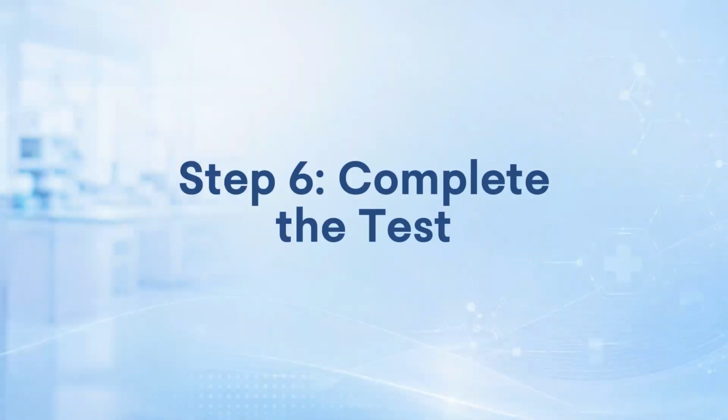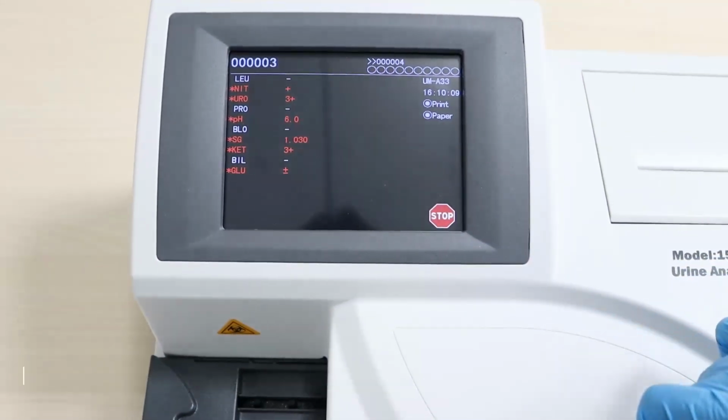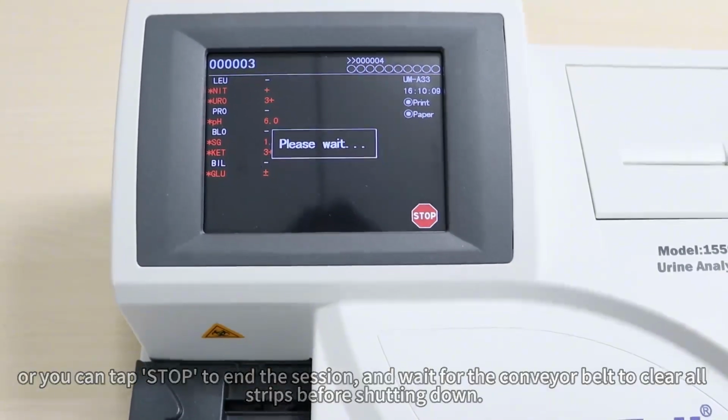Step 6. Complete the test. Make sure there are no remaining strips on the tray, or you can tap Stop to end the session, and wait for the conveyor belt to clear all strips before shutting down.